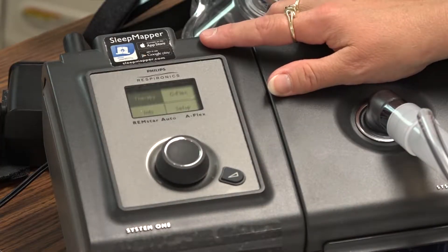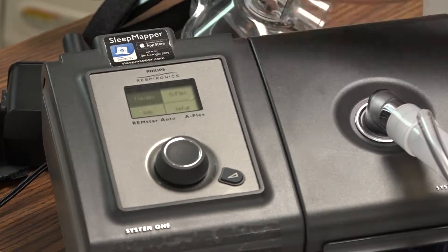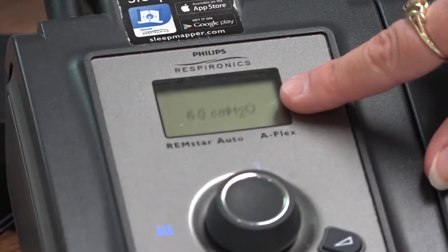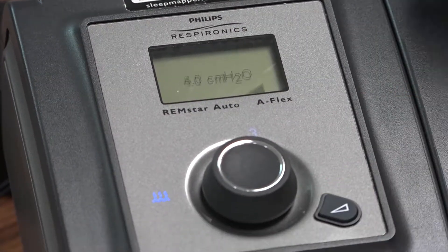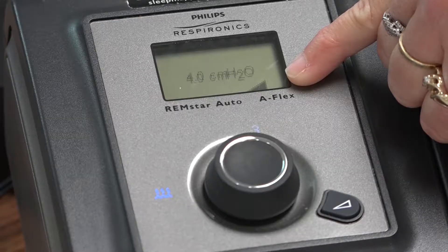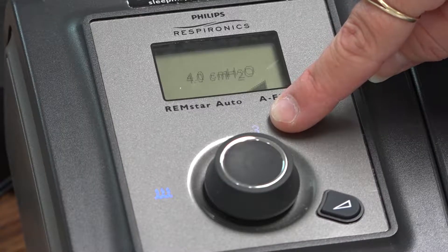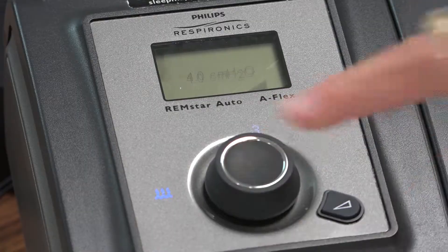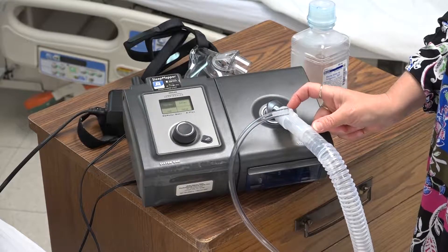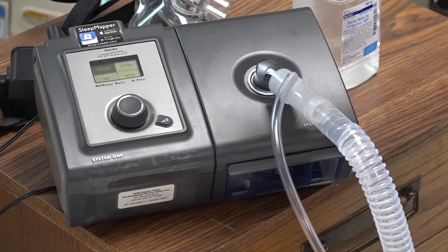This particular machine is a CPAP set at 6 cm of water. We have a ramp set at 4 cm. Turning the machine on, it initially shows 6 cm; pushing the ramp button shows 4 cm with a triangle indicator. The heater indicator shows the heater is on, set at humidity level 3. To add oxygen, a small adapter is used — we cut oxygen tubing, attach it to the adapter, and then set the flow at the flow meter.